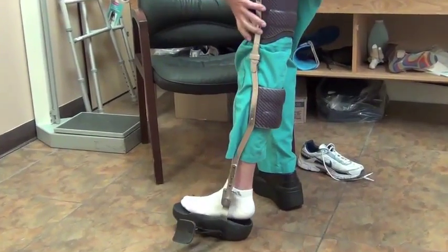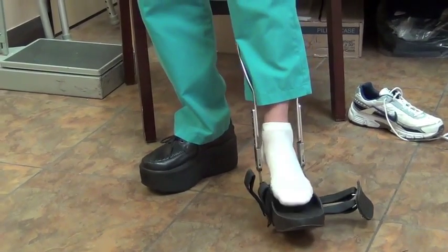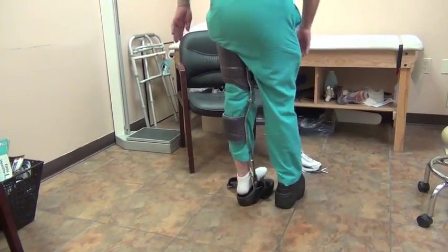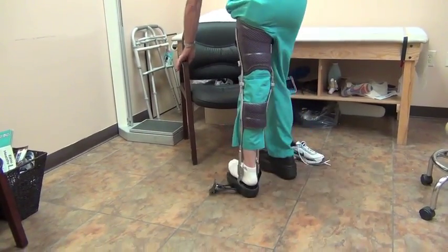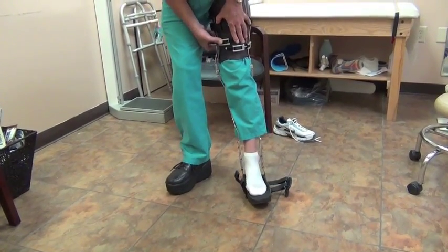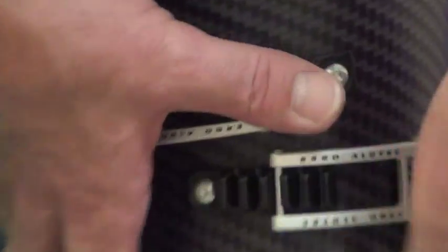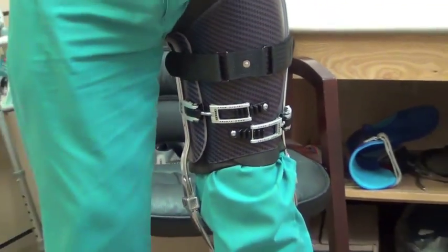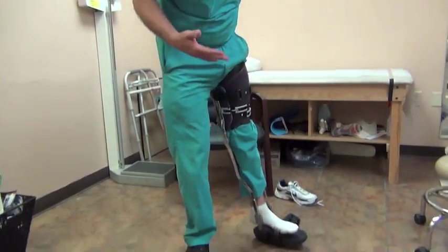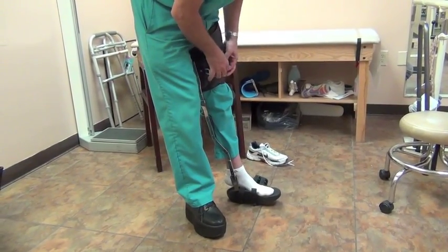All of the weight is being carried on the thigh itself. I can unweight myself some more just by pulling my leg out and then doing it again — now you see my heel suspended even better. This isn't tight; I could easily go two buckles tighter. There's one, and there's one. That's tighter than it needs to be, although that is even tolerable. Just to show you that this thing is not locked down real tight — it doesn't need to be.